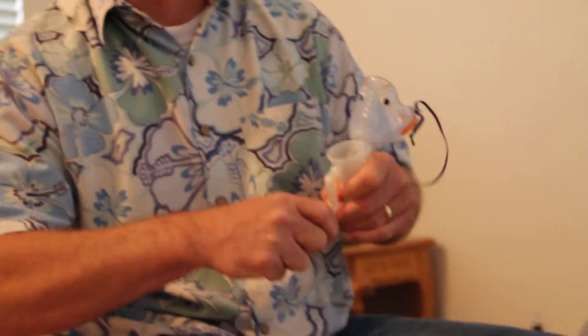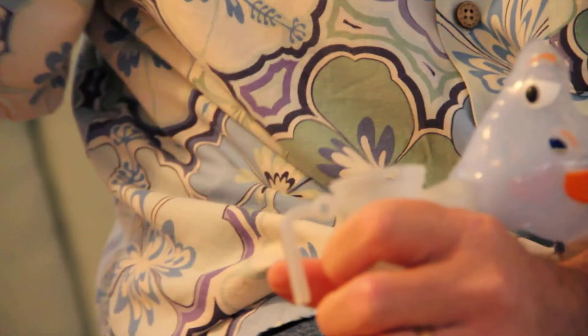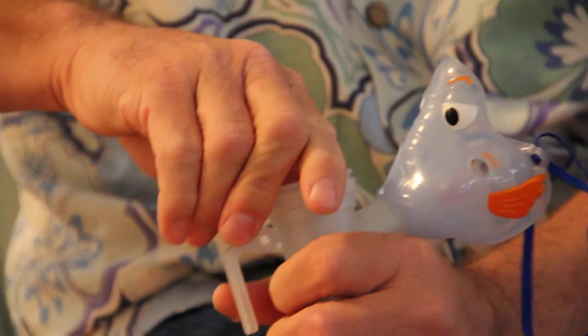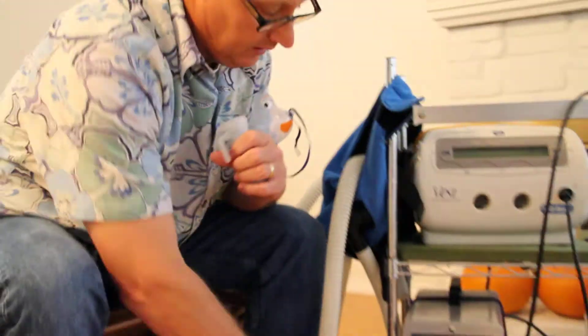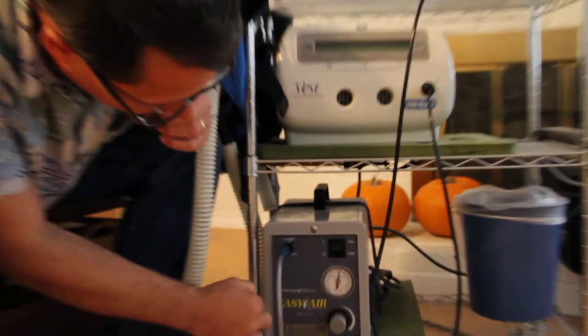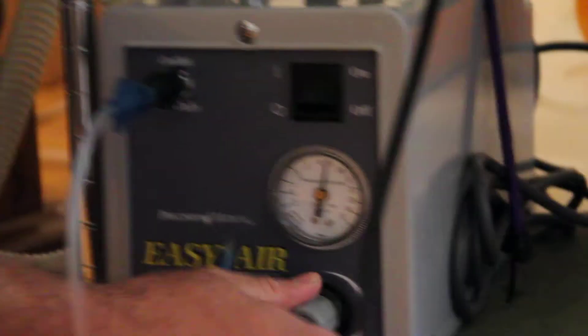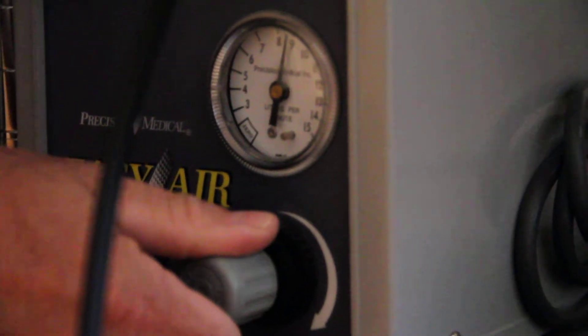In a nutshell, let me show you — we have some saline here. I put the medicine in the cup, and I've come out to eight and a half liters per minute, dialing it in between eight and a half and nine. You can see we can adjust that to whatever we want, so we're really lucky with this compressor.